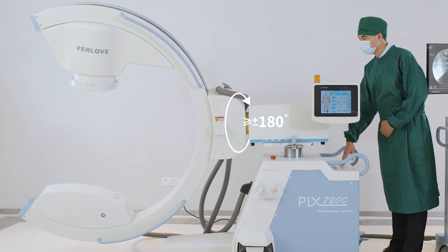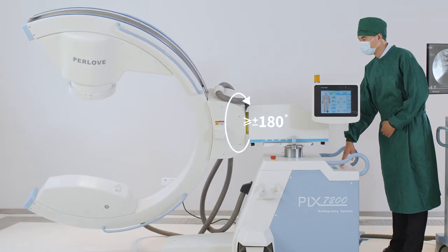Electric full angle rotation, plus or minus 180 degrees.